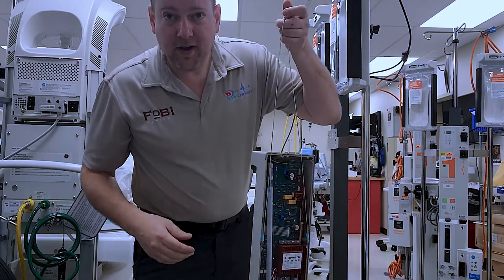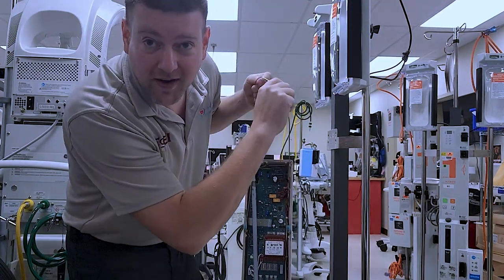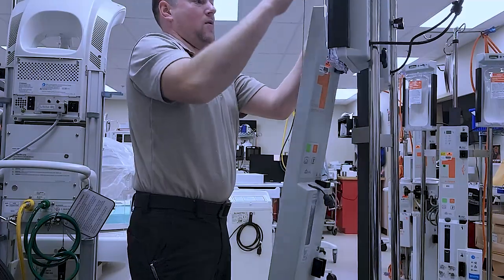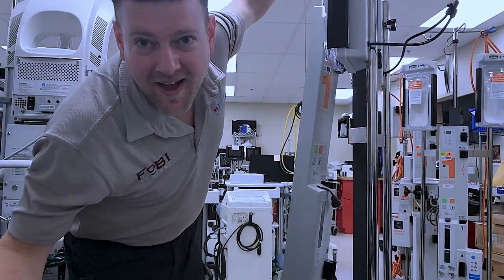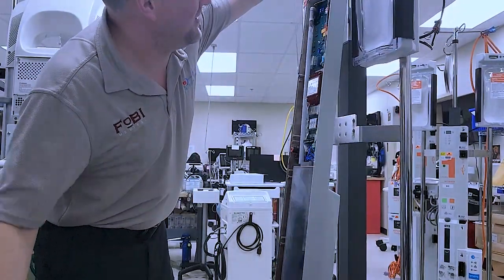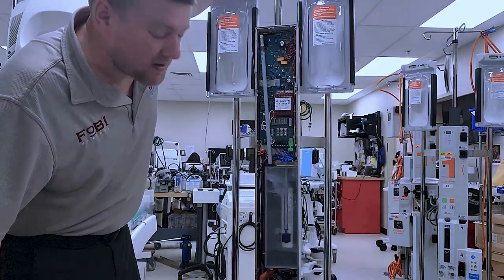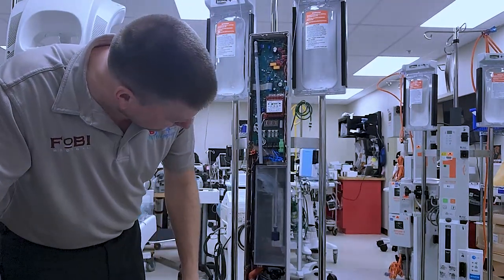Now, the unit can be suspended and you can work on it at your leisure. The trick worked actually pretty well. Take a look at this. Now, I have full open access. I don't have to worry about it tipping over.